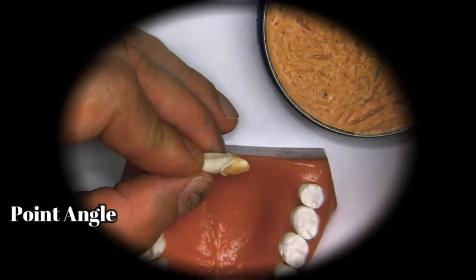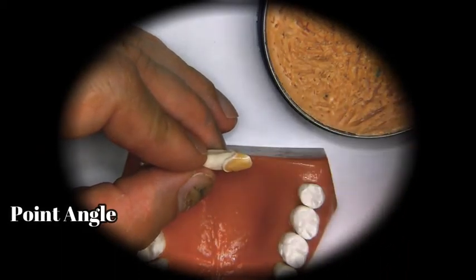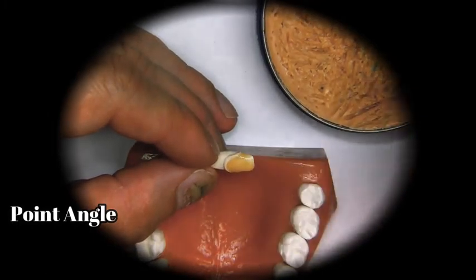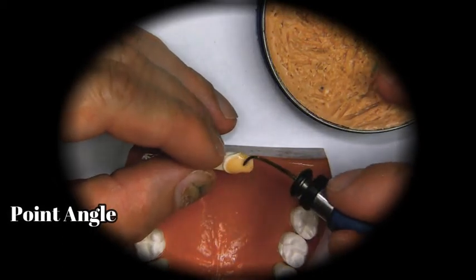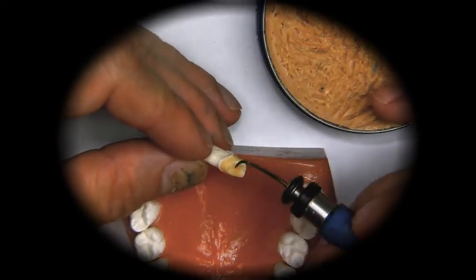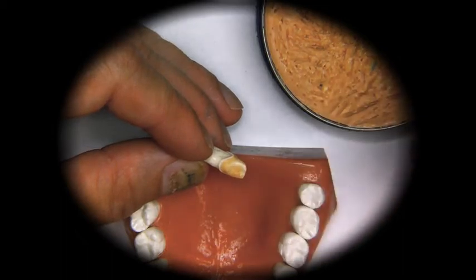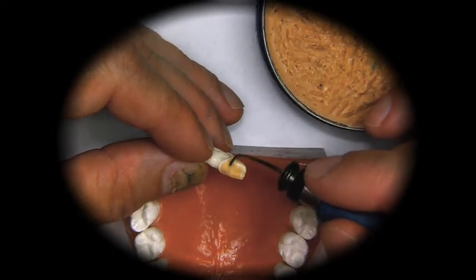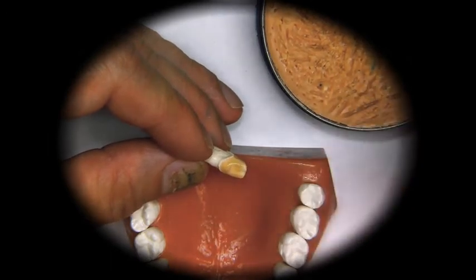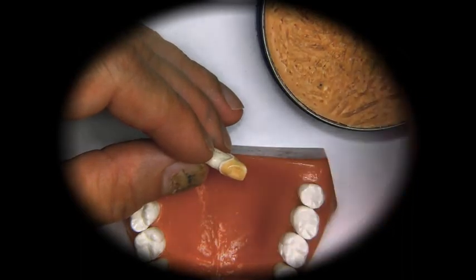We don't want to put too thin a coat on it, because then we'll just have to add more later. So we kind of fill this up with wax. In areas where it's very thin, we can add a little bit more. Make sure that you don't heat up the wax too much, because if you do, it's just going to flow off those angles and it will become thin again. We want to control the heat.